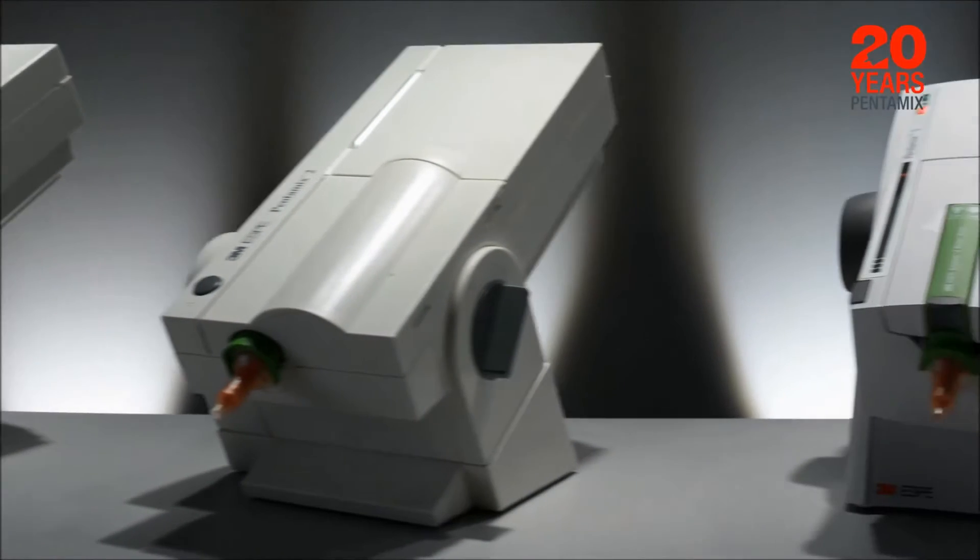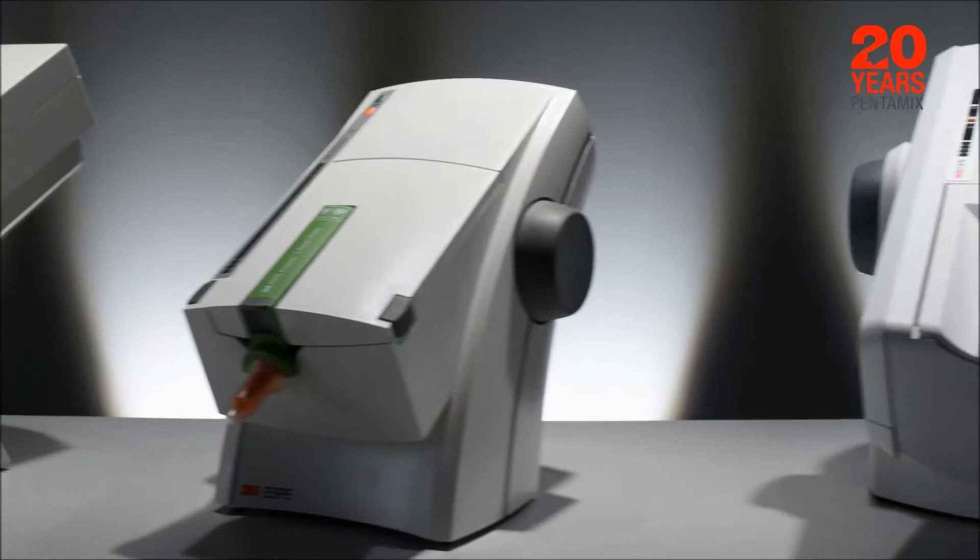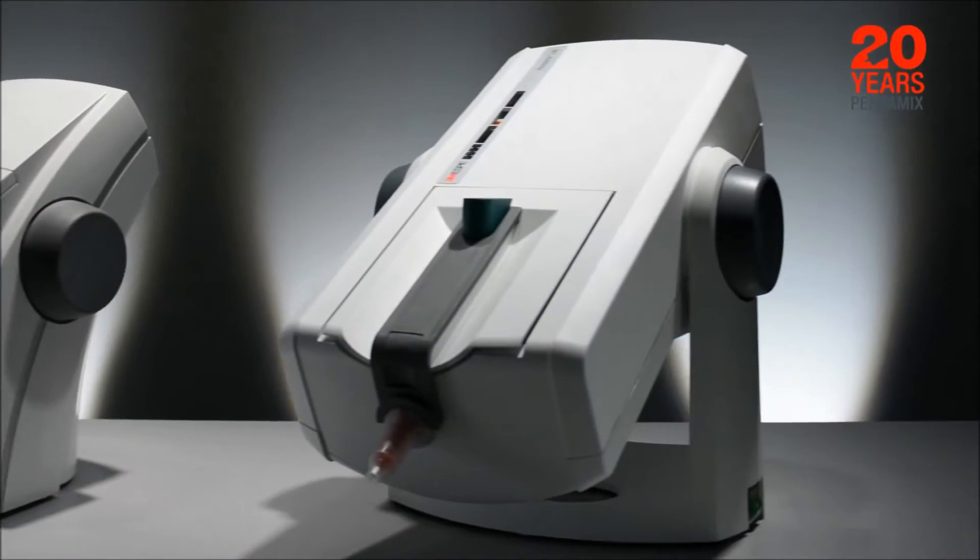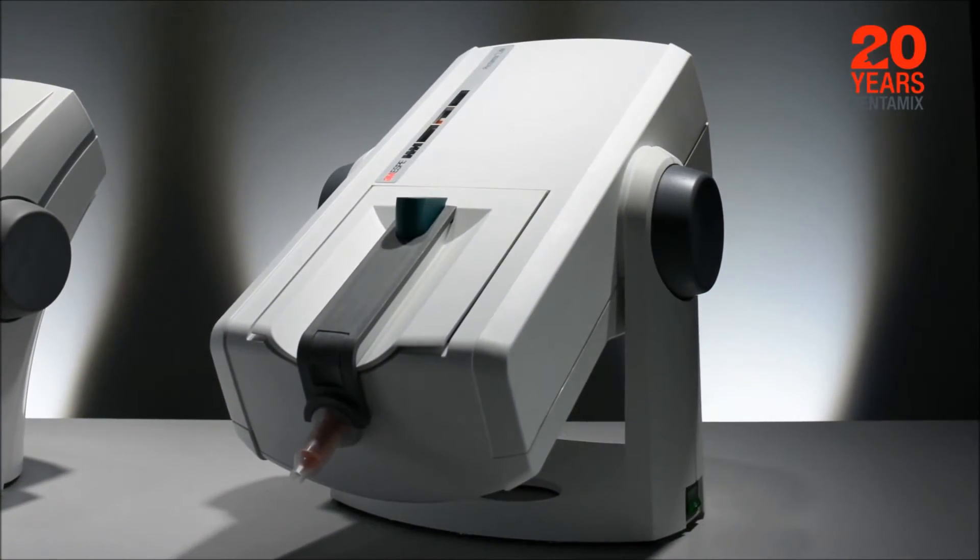3M ESPE was the first to introduce the revolutionary Pentamix mixing unit for automatic mixing of impression materials in the 1990s.